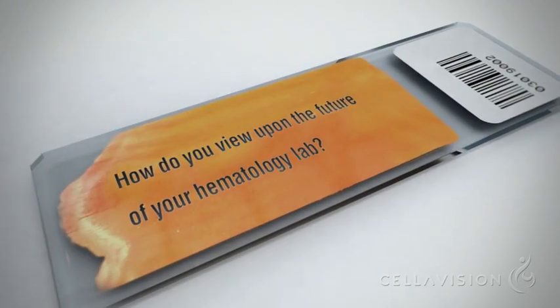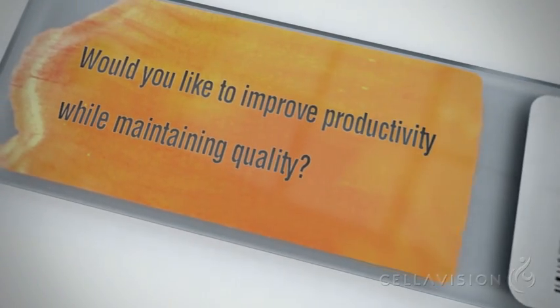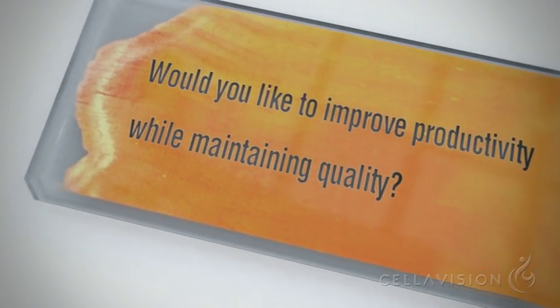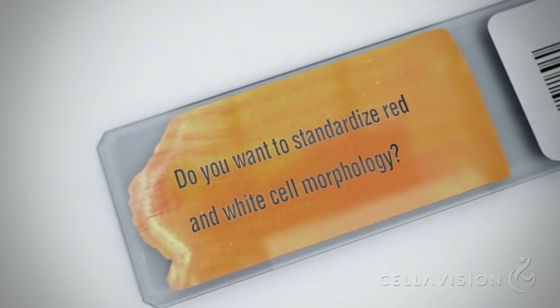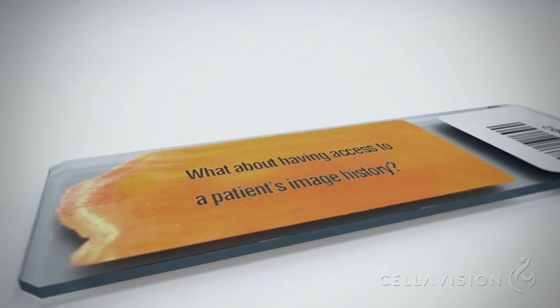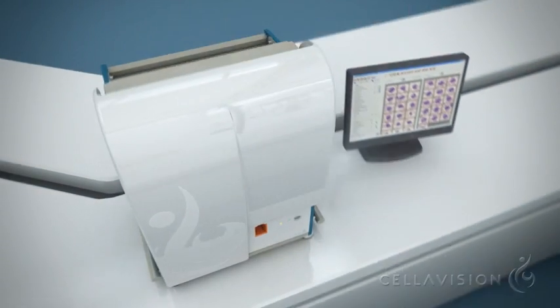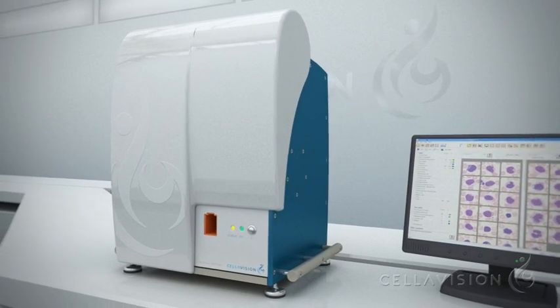How do you view the future of your hematology lab? Would you like to improve productivity while maintaining quality? Do you want to standardize red and white cell morphology? What about having access to a patient's image history? Simply put, would you like to do more with less?